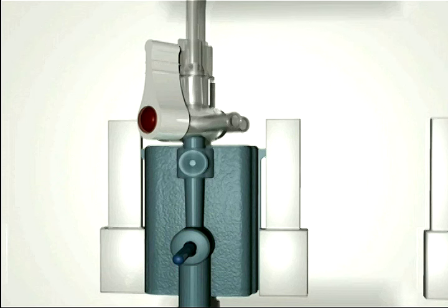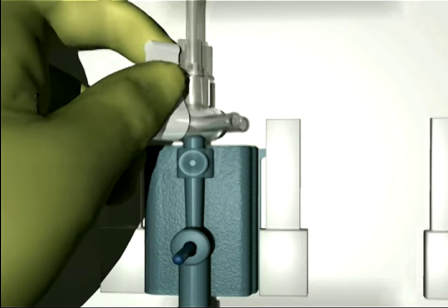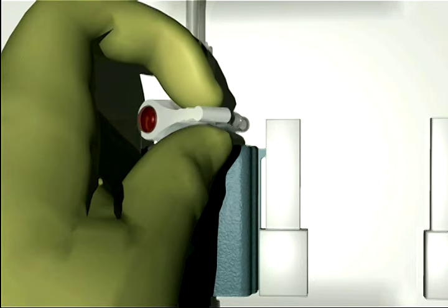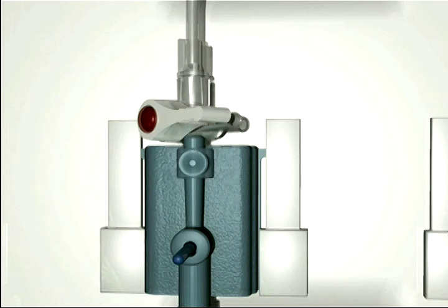Step 5: close the stopcock on the TruWave transducer toward the vent port and then return the non-vented cap.